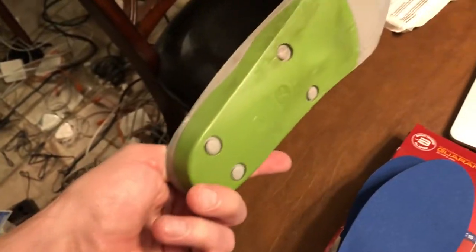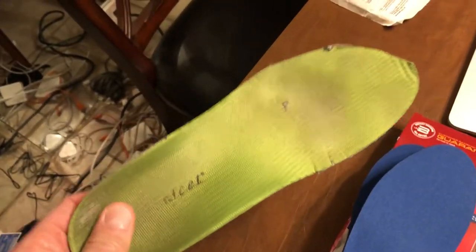For me, with all the marketing and research, it makes no sense to be paying that much money for this — you're paying almost as much as a pair of shoes when you buy them at Nordstrom Rack. So what we have here is a bunch that I bought on Amazon.